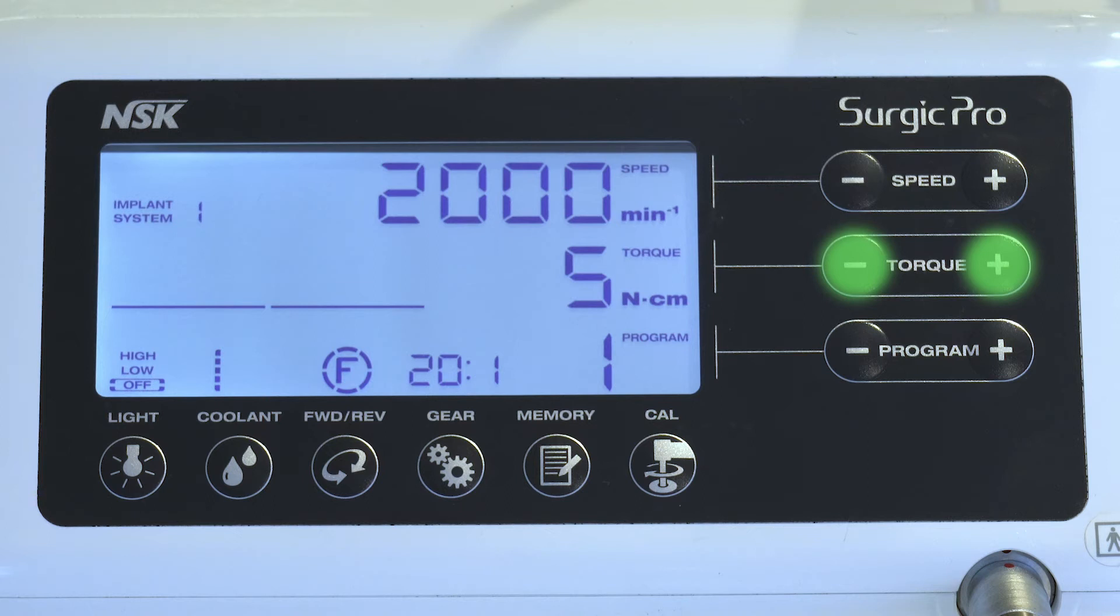After completing steps 1 to 7, press and hold the memory key until you hear a beeping sound. Repeat the above steps to program any one of the eight available programs.